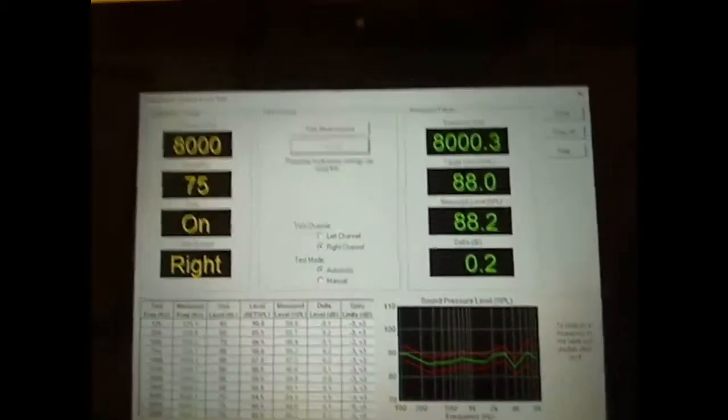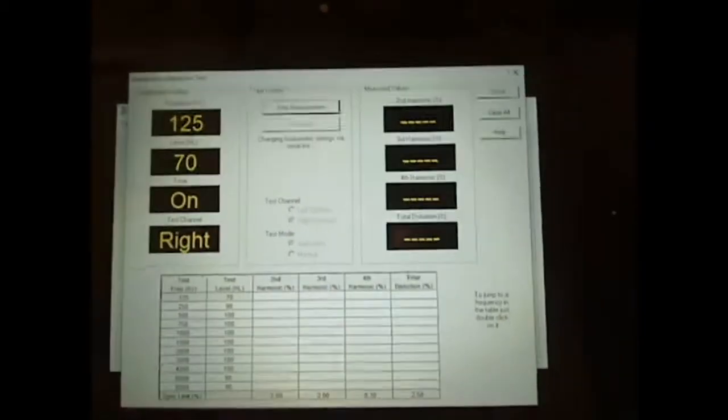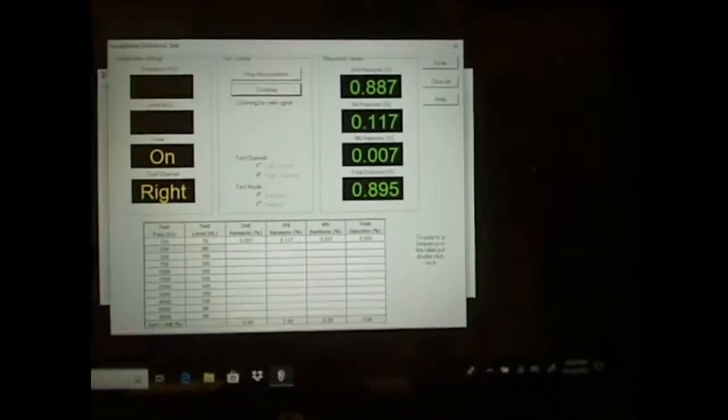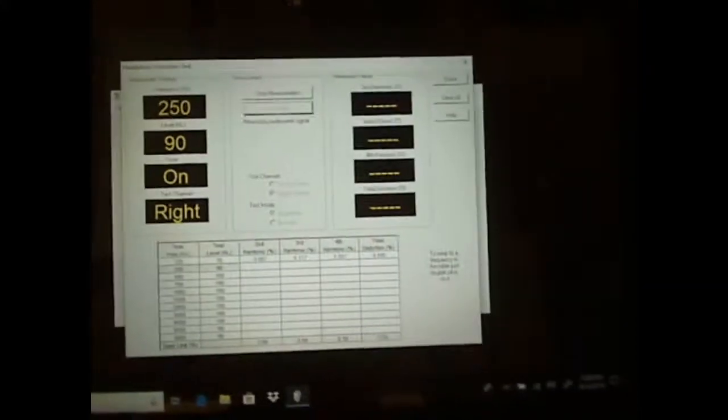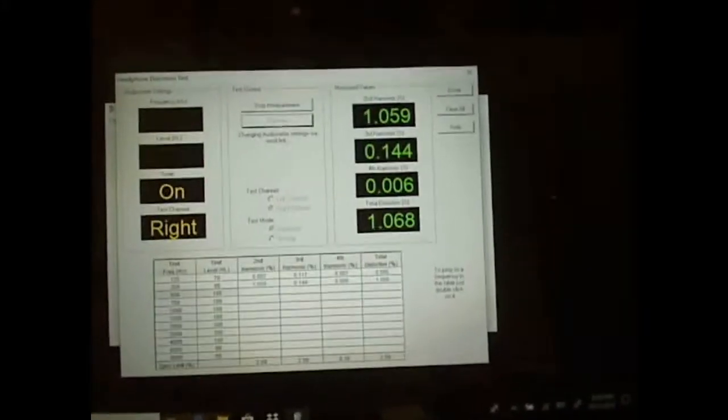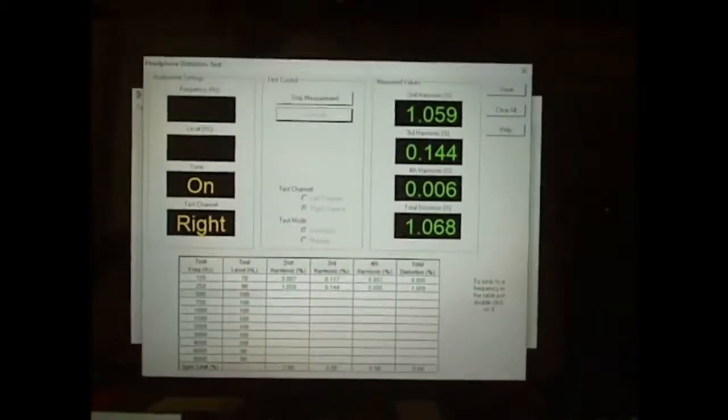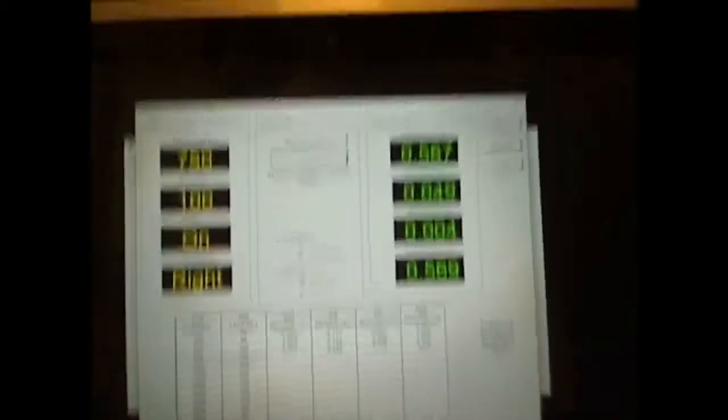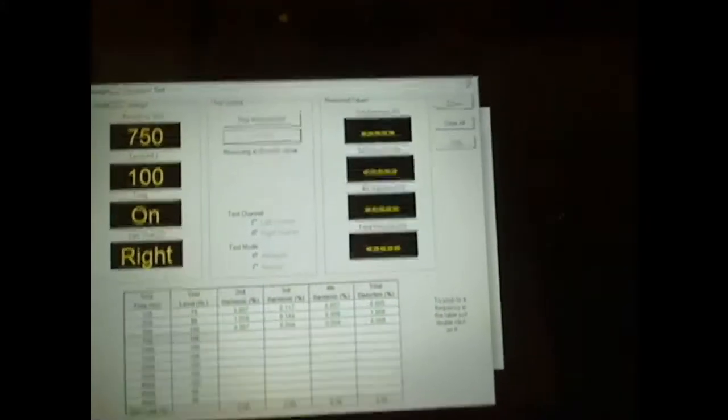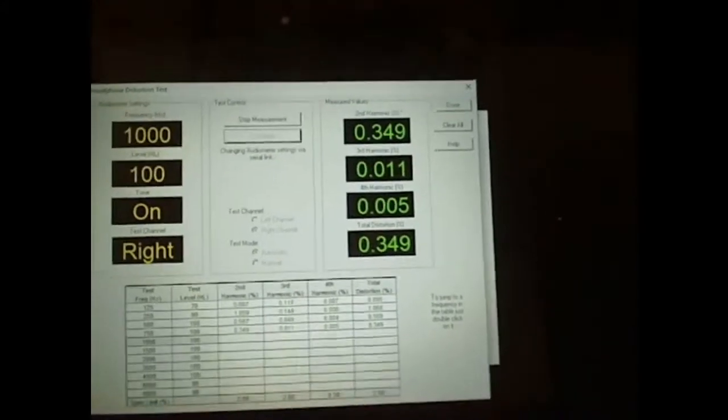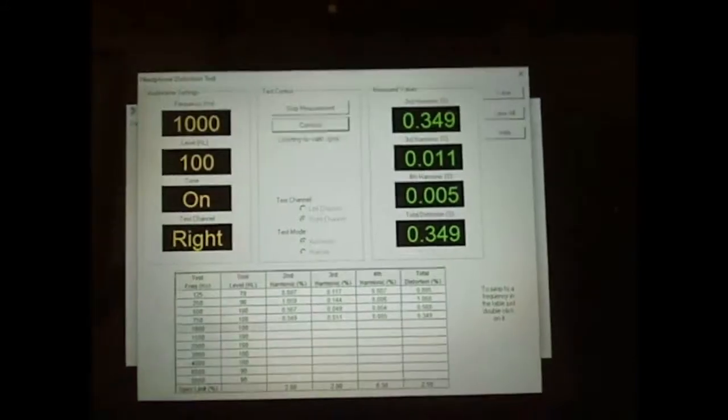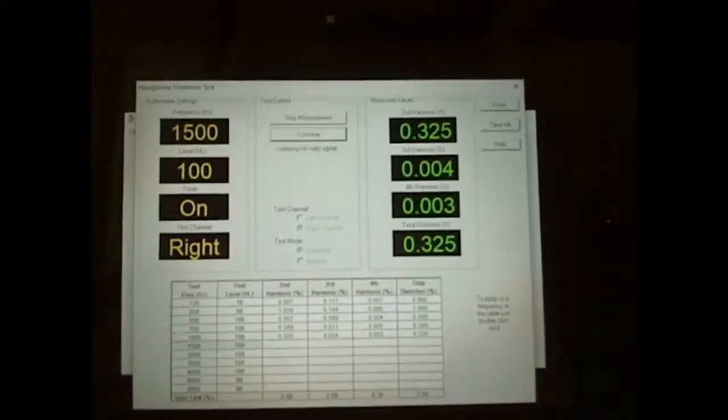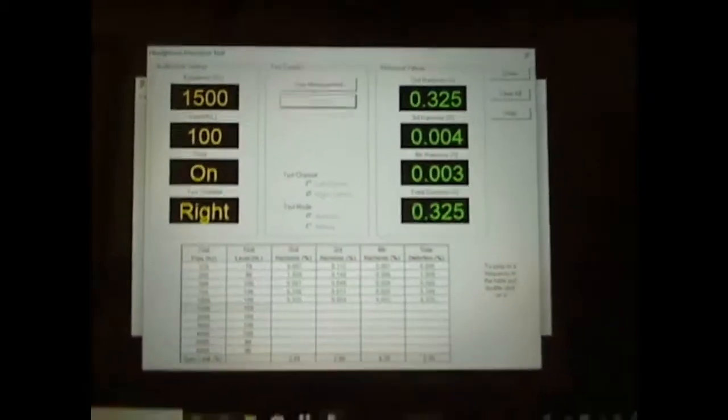Automatically, it's going to jump back over now and do the distortion. Test the distortion. This is the acoustical distortion of the right headphone. A little bit later on, we're going to go back in and we're going to do the electrical distortion so you can see if there's a difference between the two of them. Obviously then, if the acoustical is off and the electrical is not, you have a bad headphone, which is a rarity. This is plugging along and you see how fast it's doing and it's doing every frequency. I'm just going to keep quiet for a minute and let you observe here.